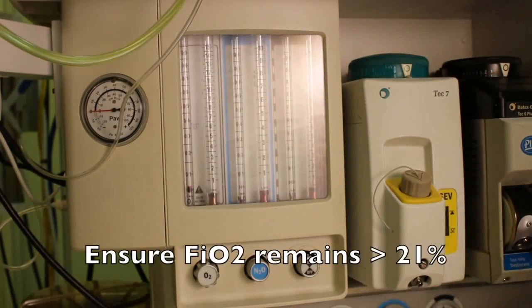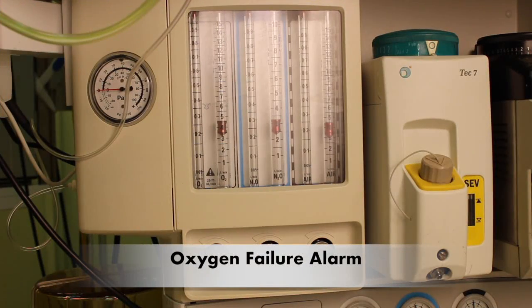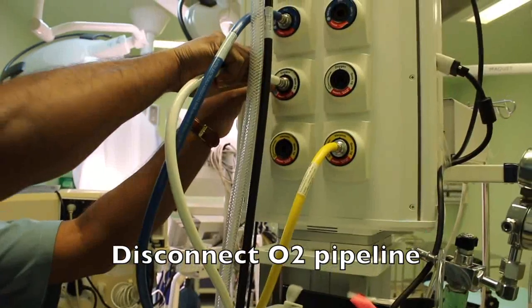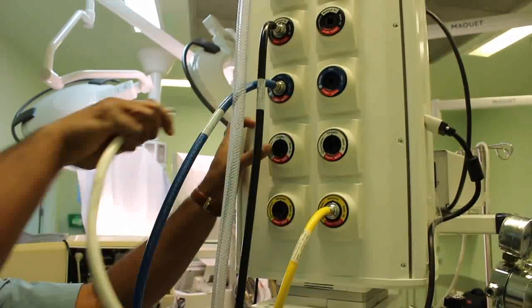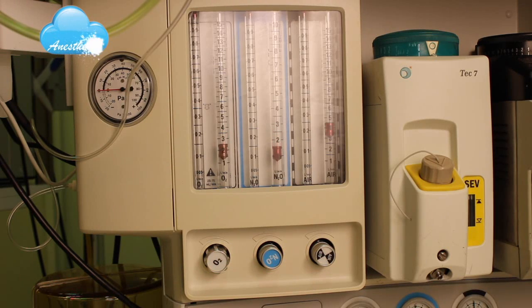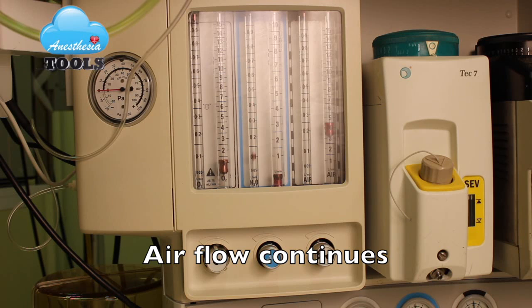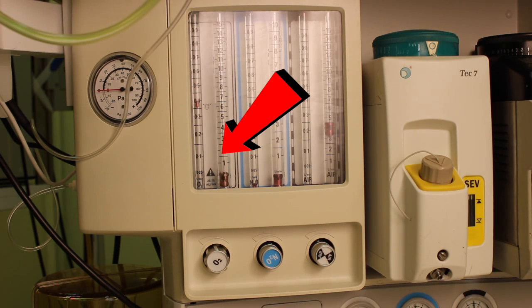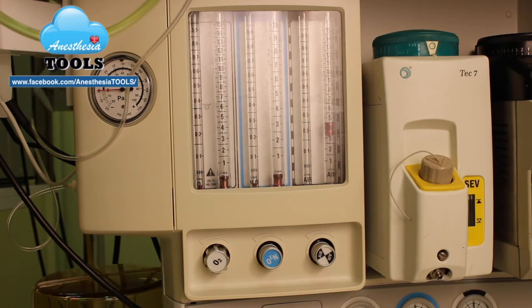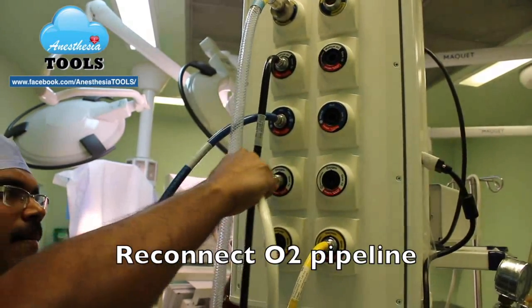See that the machine shows FiO2 more than 21% throughout the full range. To check for the oxygen failure alarm, set the oxygen, nitrous oxide, and air flow to mid range, then disconnect the oxygen pipeline. See that nitrous oxide and oxygen flows reduce consistently but oxygen flow comes down last. Air flow continues and the oxygen failure alarm should go off. Now reconnect the oxygen pipeline.